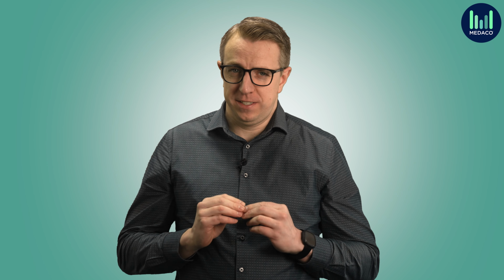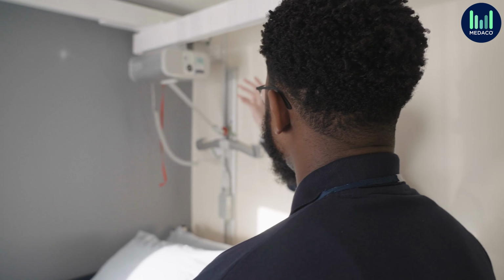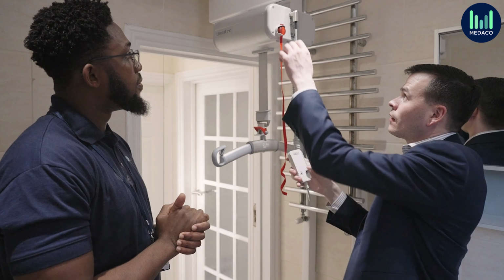In previous videos and blogs, Medaco have covered many of the considerations your care facility can come across when having a ceiling hoist installed. After clarifying the specifications your service user needs and the allocated budget available for the installation, have you ever wondered what ceiling hoist track design layout is best suited for my facility? In this video, we will talk about the two main ceiling hoist track layout designs.